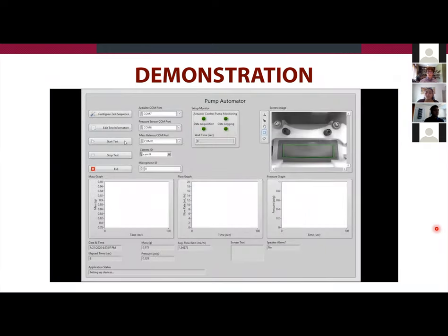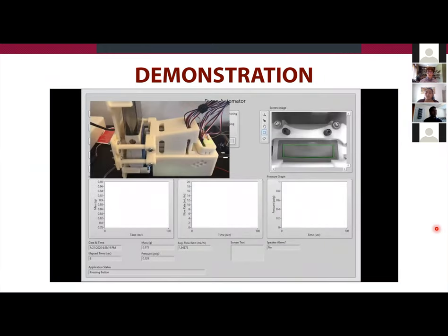As we start up this test, you can see that an actuator extends to press that on and off button. And then on the right side with the screen image feed, you can see the startup sequence. In this case, we caught an alarm. After detecting the alarm, we decided to clear it automatically using OCR, and then we'll let the rest of the startup sequence do its thing.